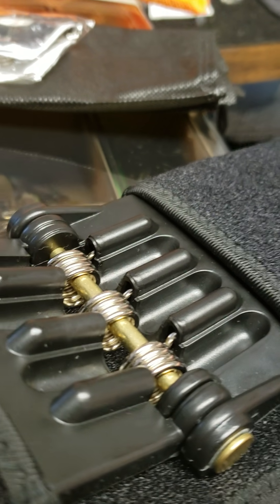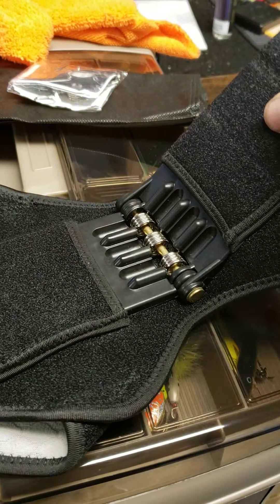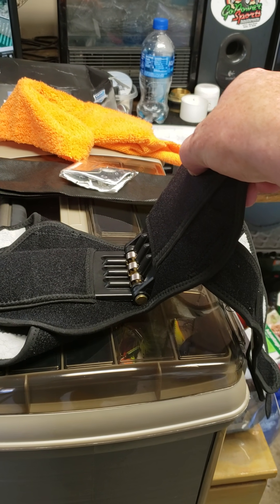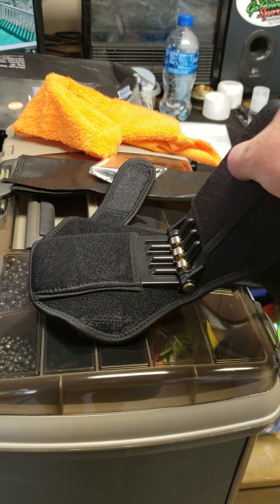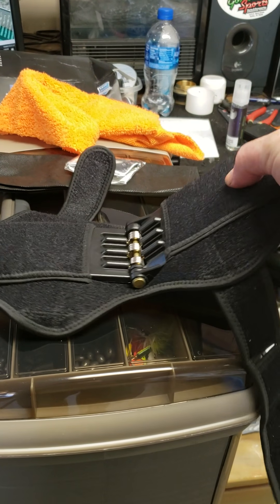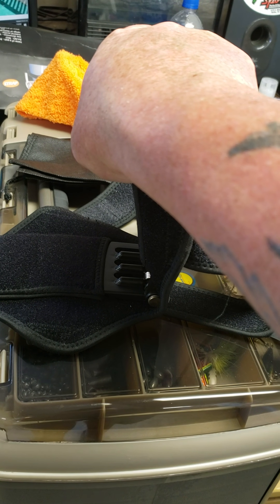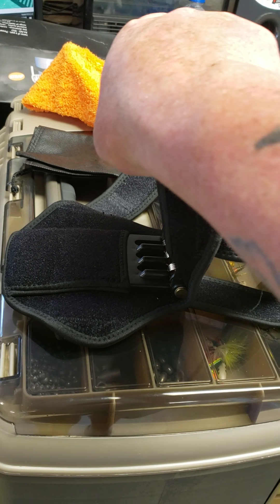I'm not going to be able to show you, but see how it's sitting in there and there's a lot of room. You go all the way to here — all the way to there — before there is any tension whatsoever. It's just nothing. All the way to there. Now there's some tension right here, but your leg is almost at 90 before you actually really get anything.